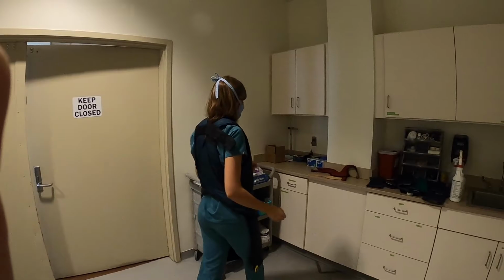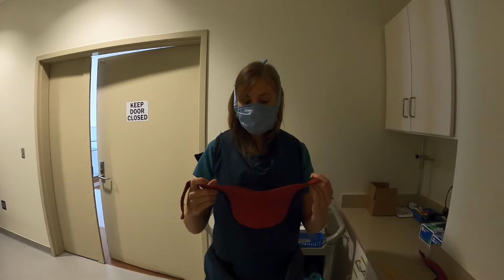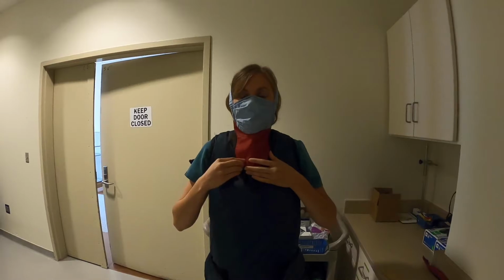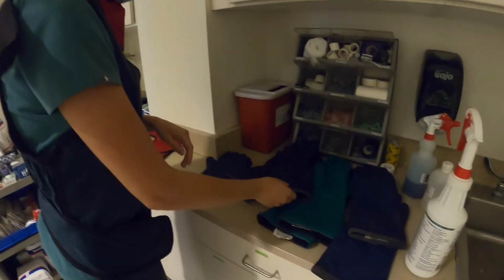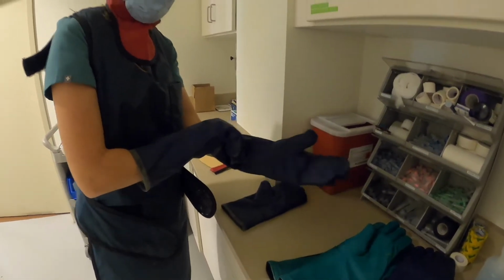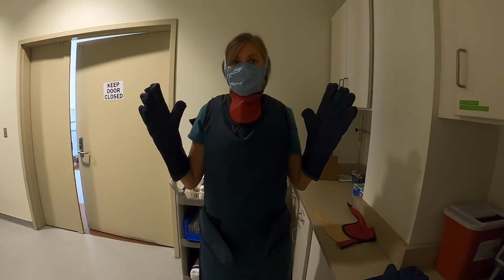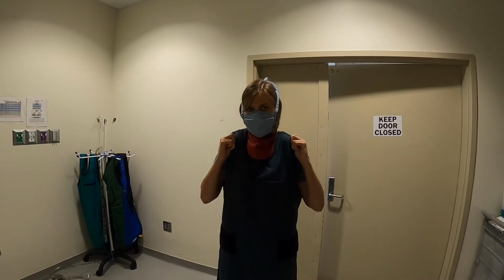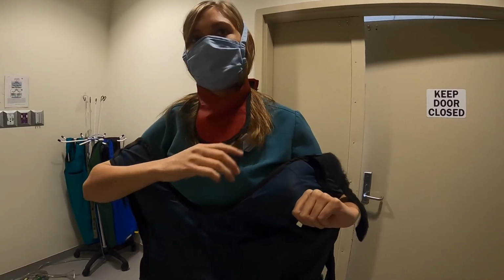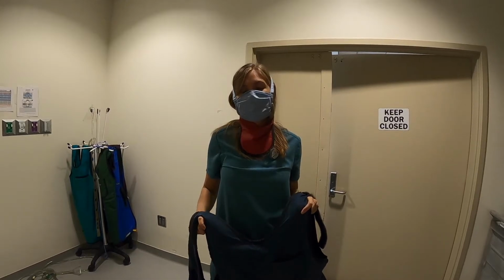That way for when you pick up the thyroid shield, which is optional, but we recommend it because your thyroid is sensitive to radiation. You're going to put that up around here, and you should have that covered here so there's no gaps. The next thing you want is some gloves. You'll usually put exam gloves on underneath these to keep them clean, but this is what you will be wearing for being a holder. Make sure when you have your gown on that your radiation badge is underneath your lead and protected. That is just showing that the gown is doing its job and protecting you from the radiation.